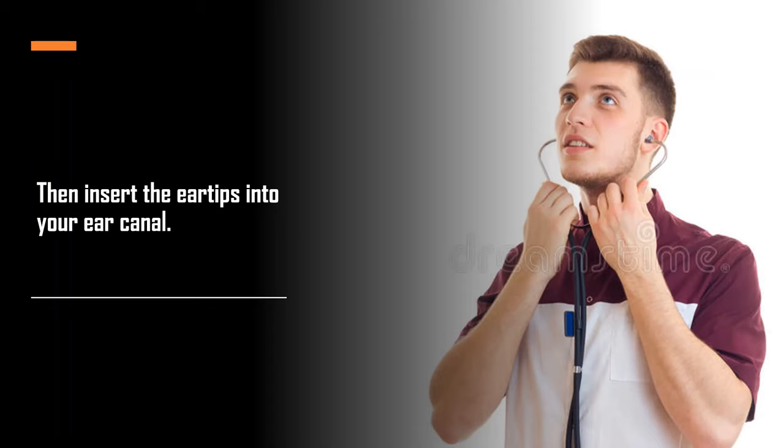Then insert the eartips into your ear canal. Now you would be wondering why do I have to hold it like that and wear it this way. What difference does it make?